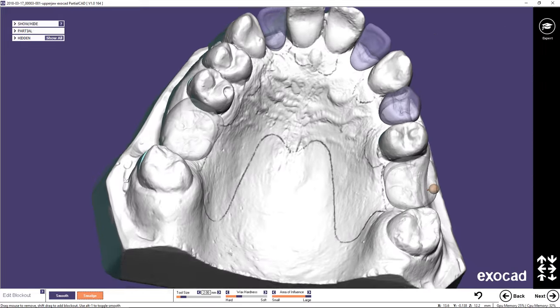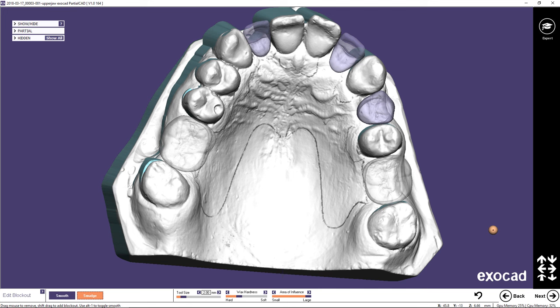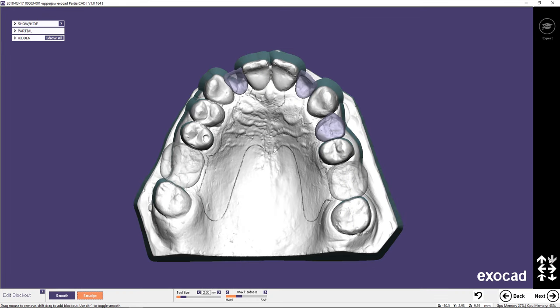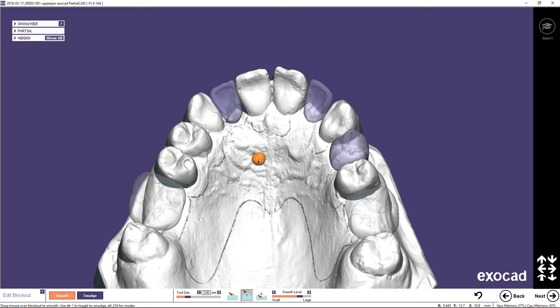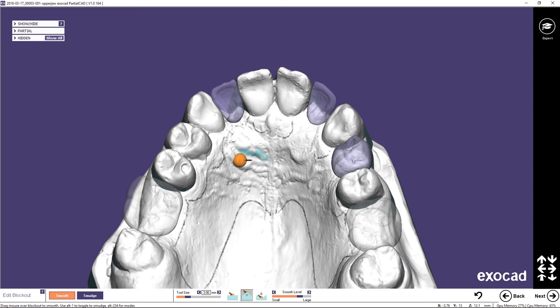Adding palatal relief or softening sharp angles may be desired. To apply additional blockout wax, choose Smooth in the wizard menu and the Additive Smooth option. The tool size can be adjusted by holding Shift and scrolling the mouse wheel. Likewise, the strength of the wax flow is adjusted by holding Control and using the mouse scroll wheel. You can find a complete list of hotkeys in the ExoCAD wiki.